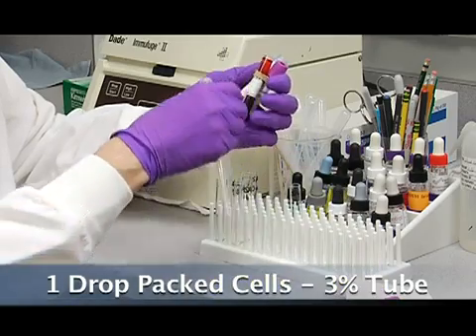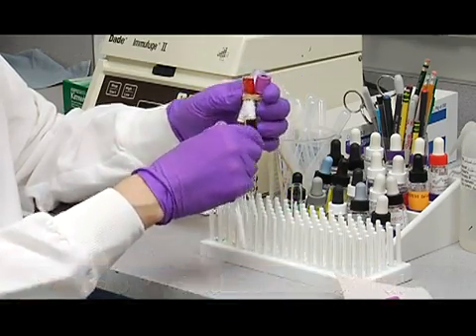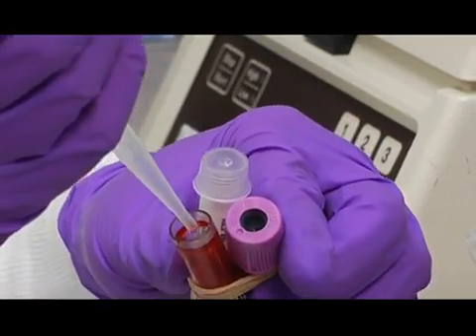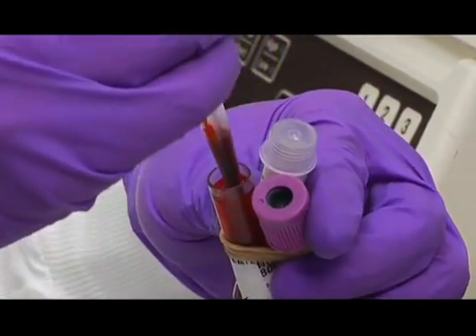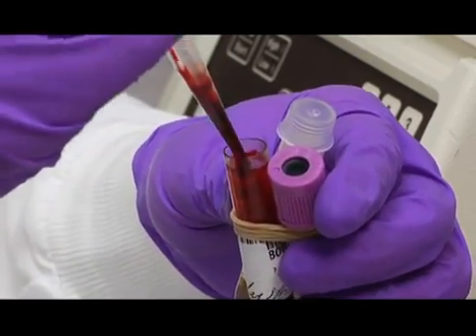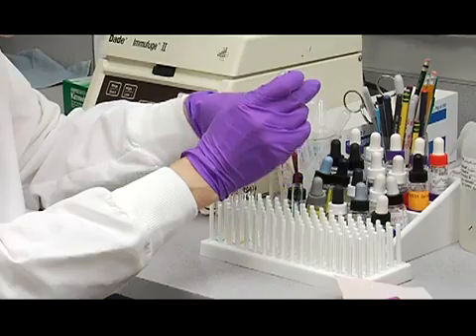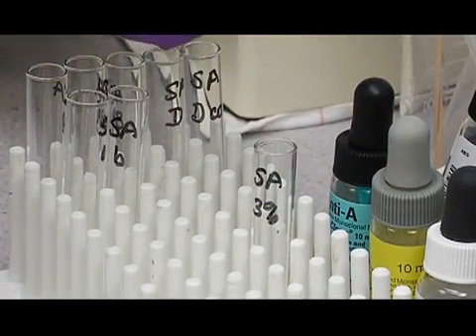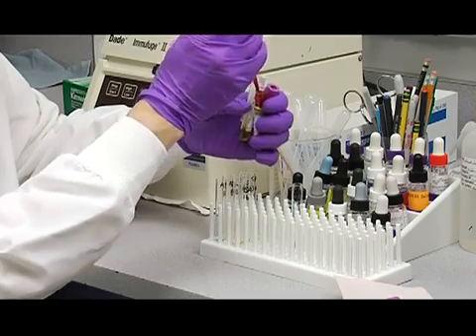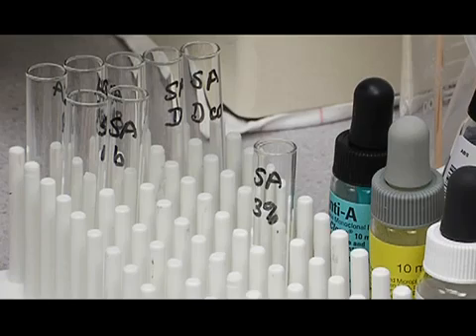We're going to add 1 drop of packed cells to this tube labeled for the 3% suspension. So go down and grab some. They're pretty thick and gummy. And so we're going to add a drop to there. Put the excess back into the tube. Cap the tube. Now I'll show you how to prepare a 3% suspension.